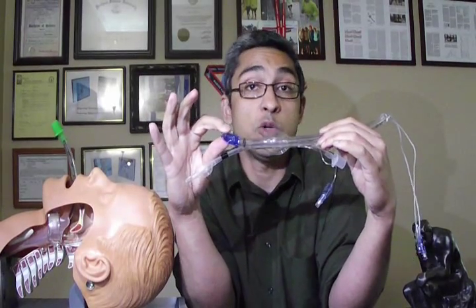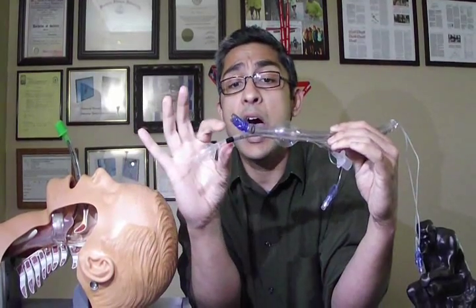The tube on the back attaches to the ventilator and is called the ventilation tube, and therefore it is longer and protrudes farther. The anterior blue colored viewing tube is 3.5 millimeter in inner diameter because that's the tube that will house a pediatric bronchoscope. The ventilation tube looks very much like an endotracheal tube, with a diameter of a regular adult endotracheal tube, somewhere between 7.5 to 8.5 millimeter.